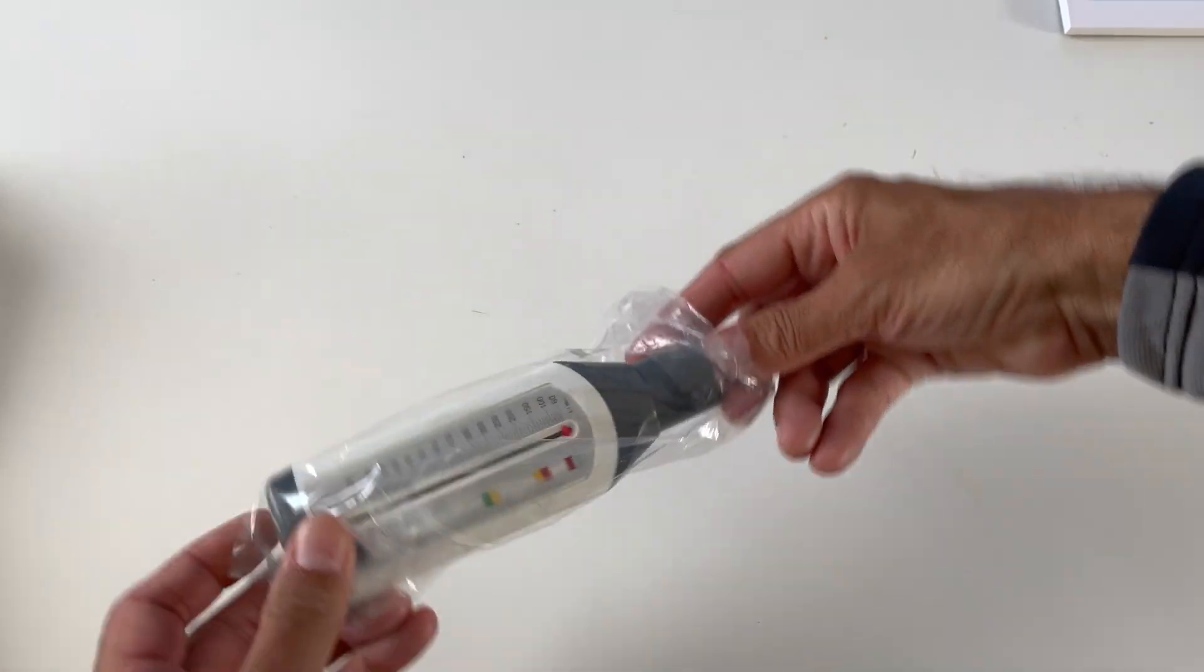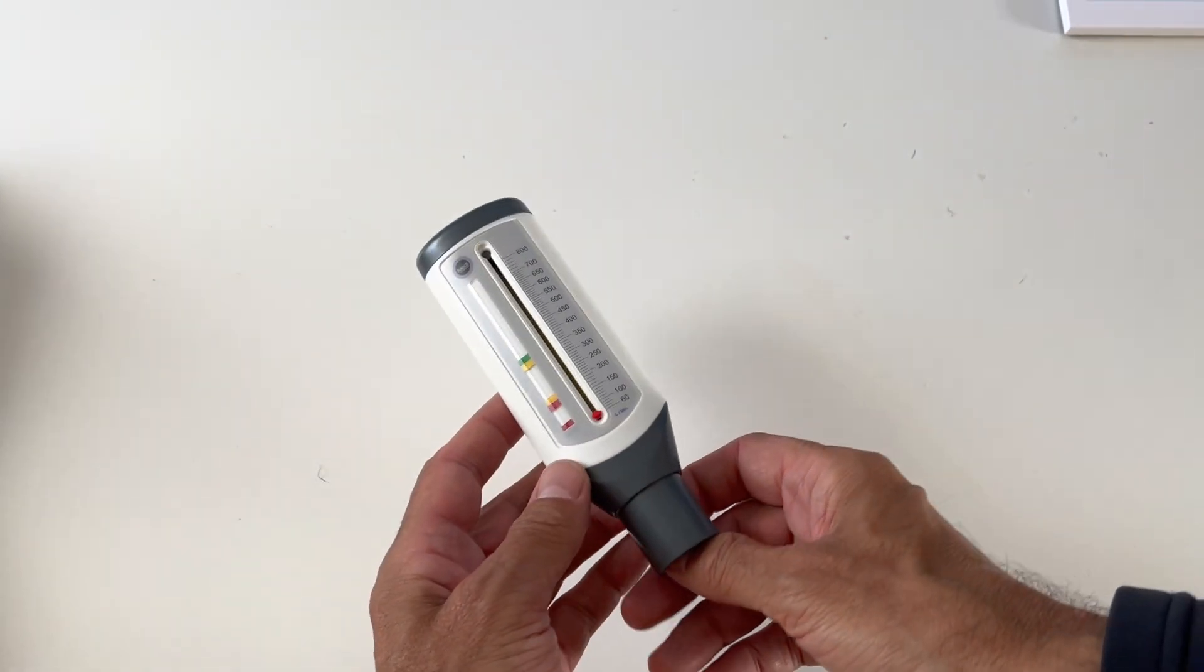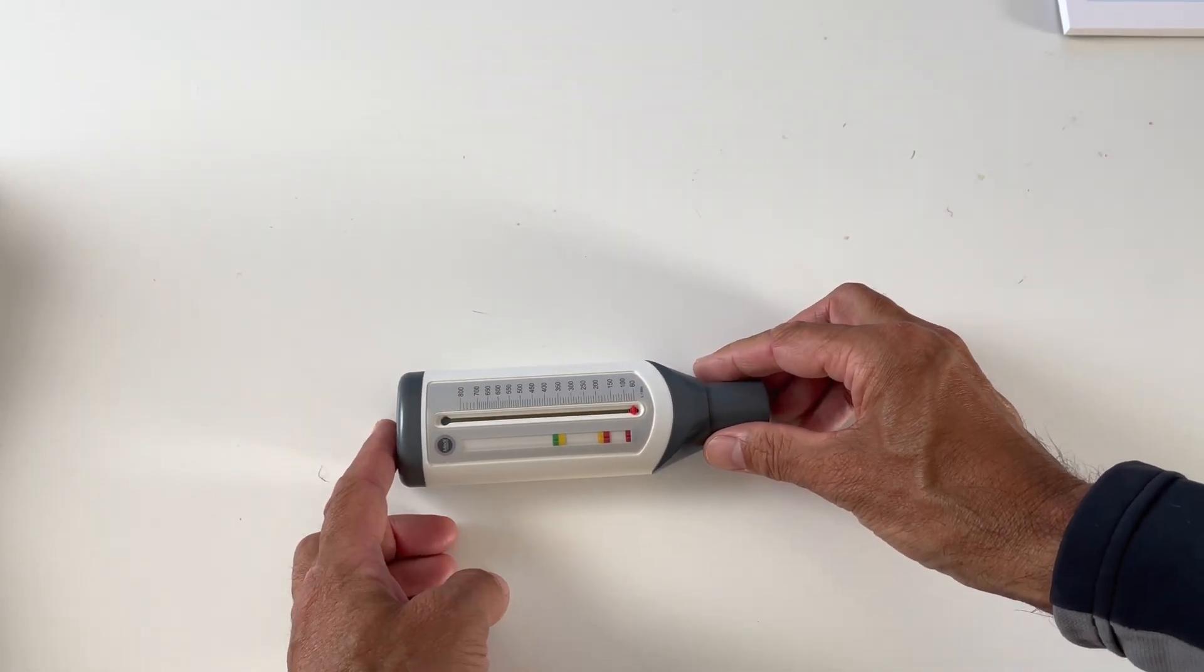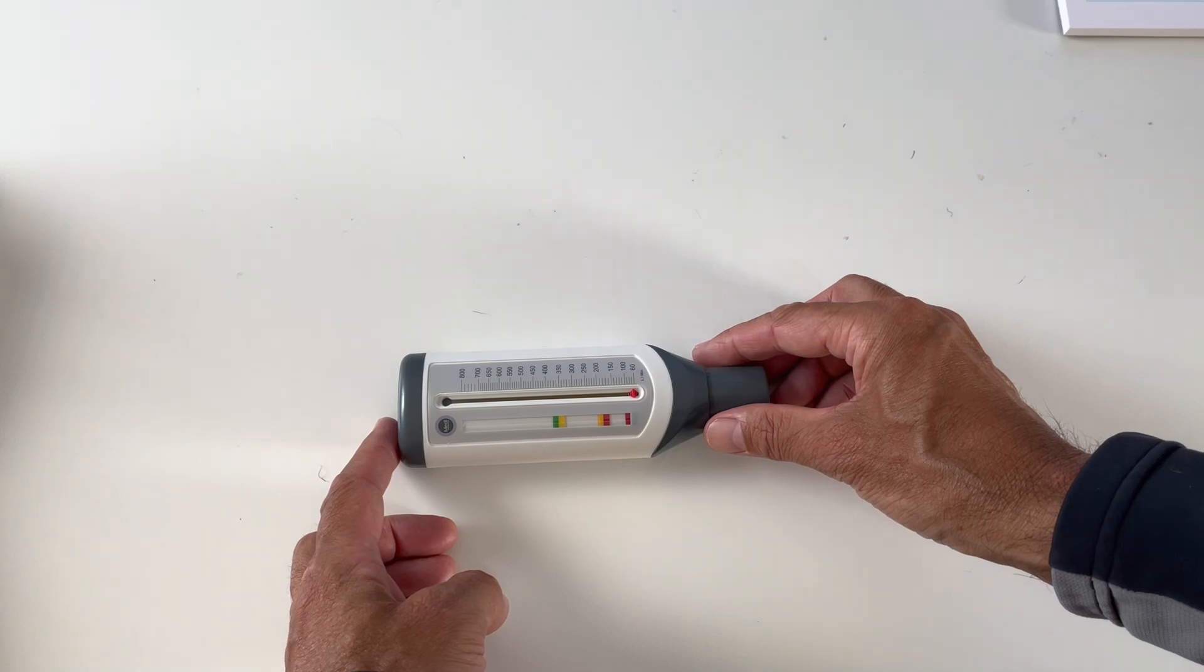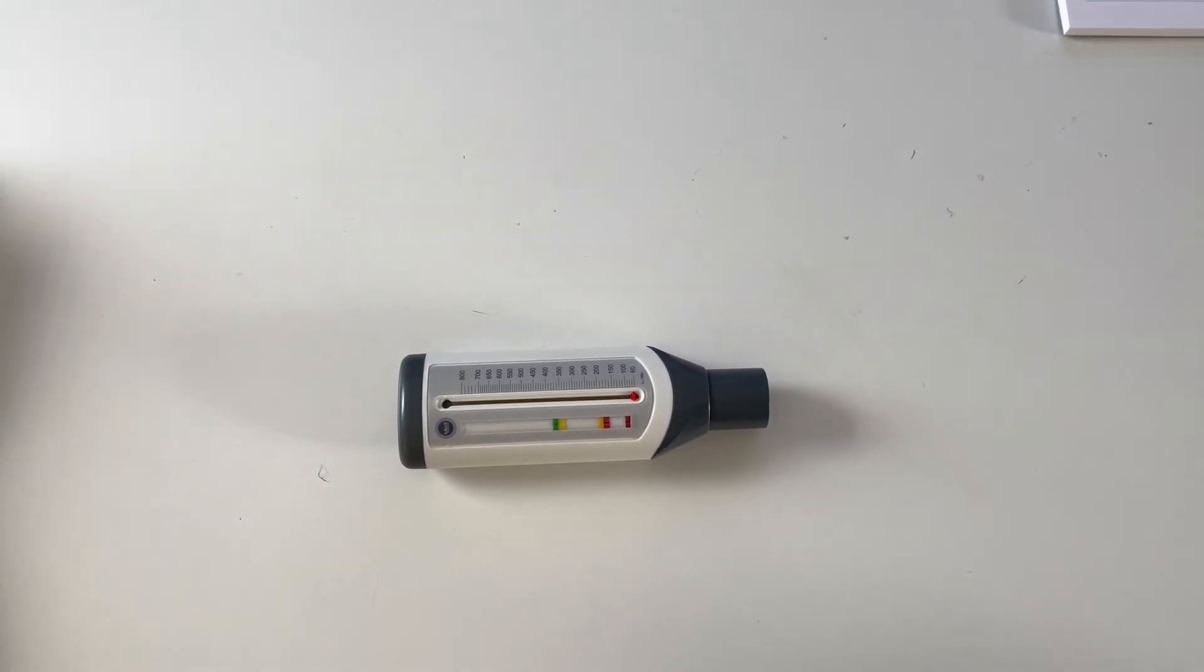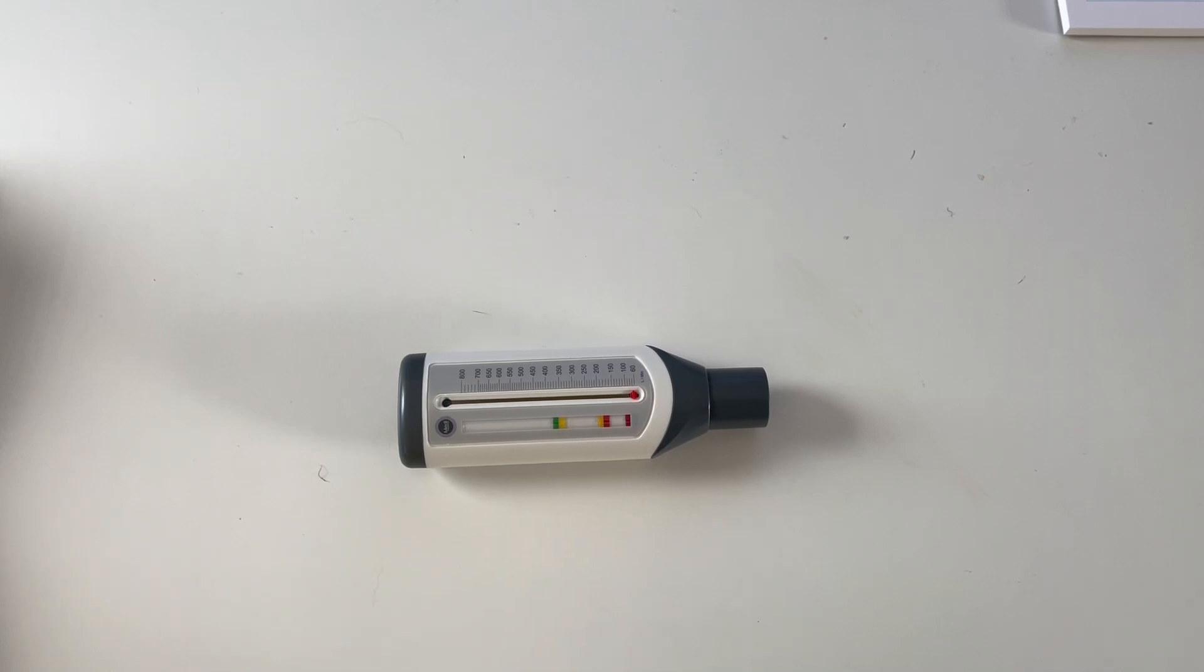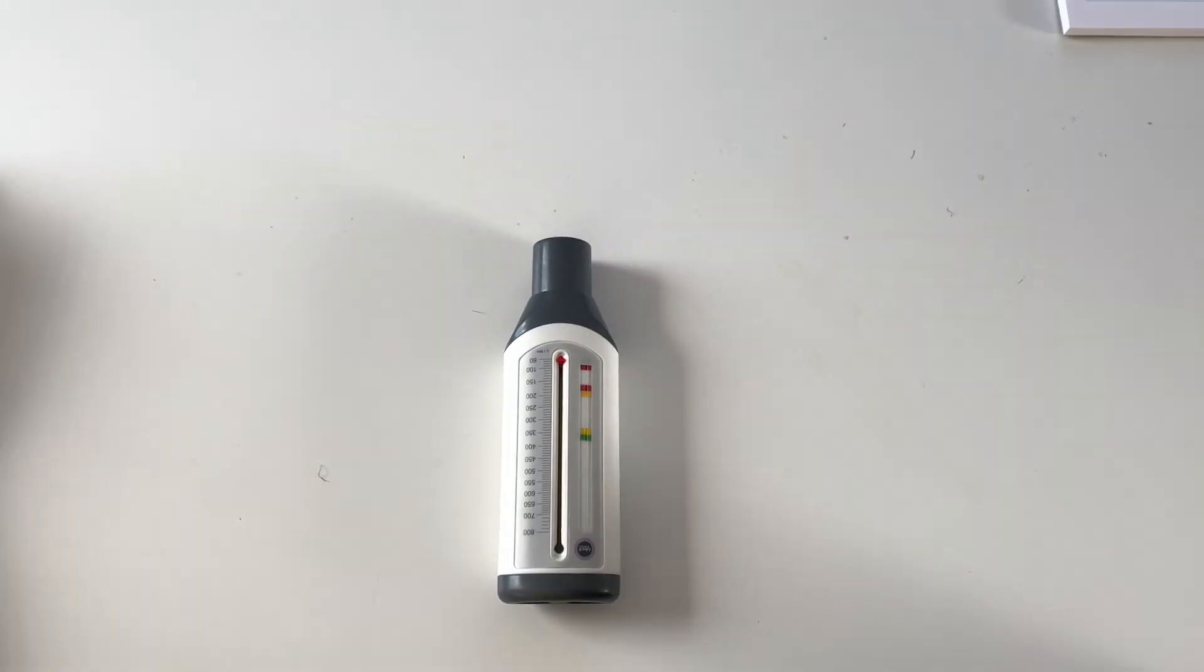So this is a device, they say in the instruction leaflet which I have actually read, that you need to get one every three years or less. Perhaps every year when you have an NHS checkup, if you have asthma in the UK, your NHS practice will ask you for a yearly checkup. And my yearly checkup has just been, and that's how come I have this particular device.